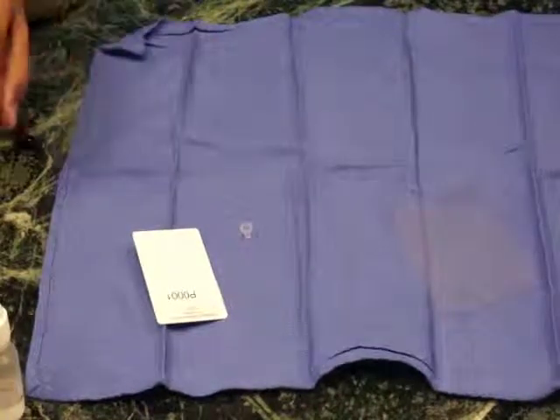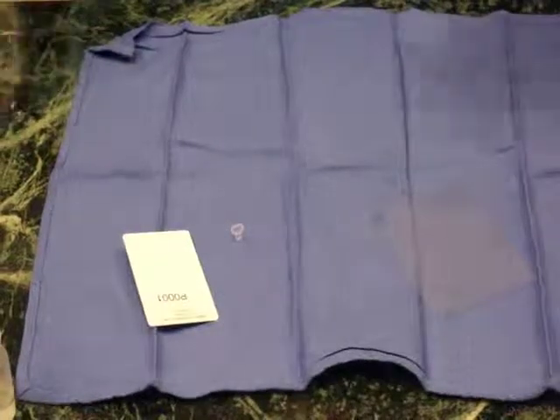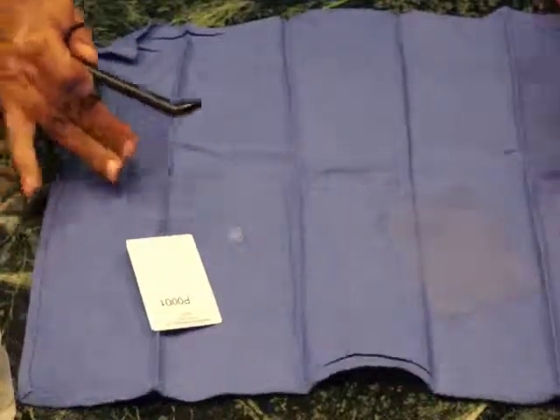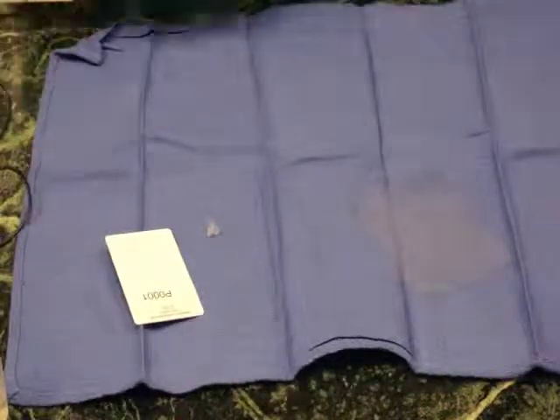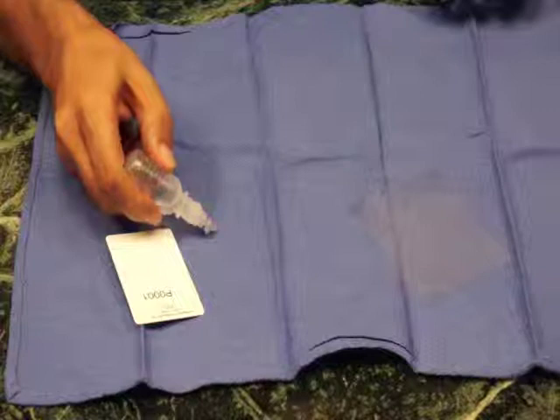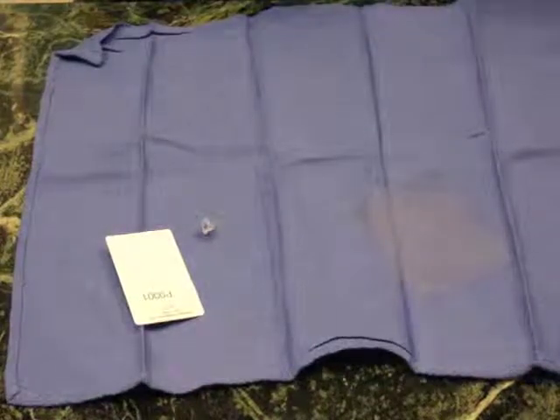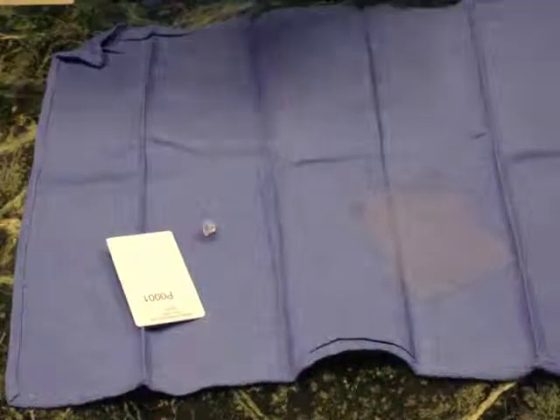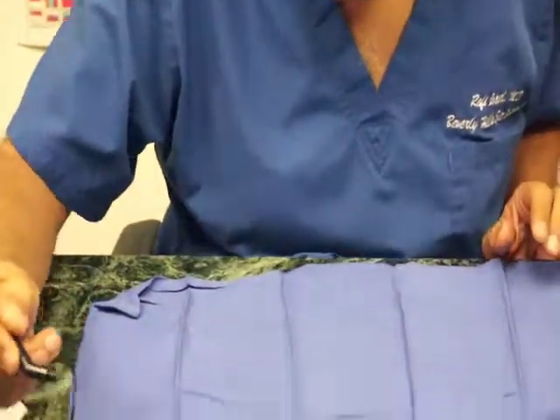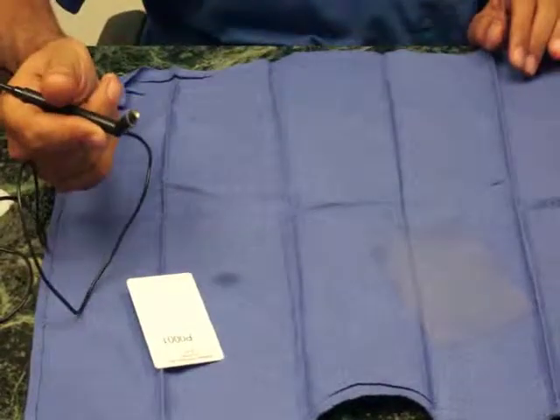This is an example of such a tip. In this video, I'm going to teach you how to capture the flaps using the PalmScan very easily. After placing the sterile tip cover on top of a sterile drape environment, we recommend that you place one drop of sterile BSS inside the pachymeter tip cover. We also recommend that somebody wipe the entire transducer complex with alcohol, so the handle and everything is wiped down. At this point, place the tip of the transducer inside the transducer tip and now you're ready to go.